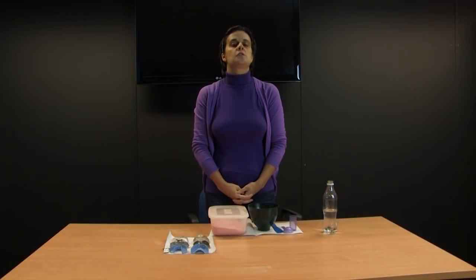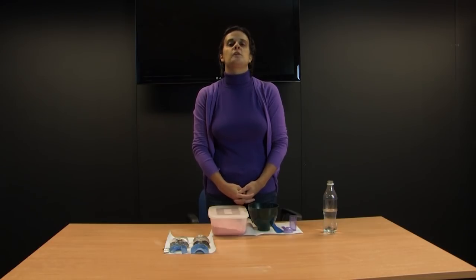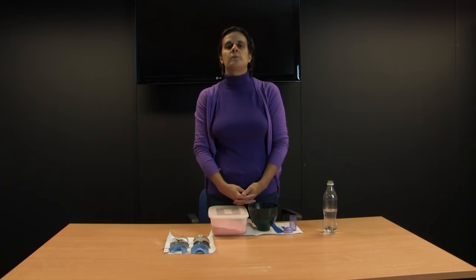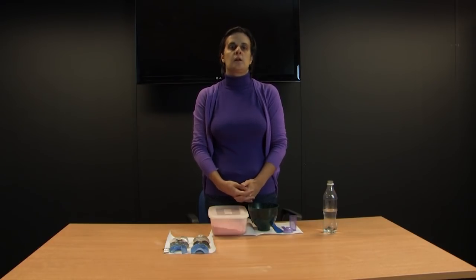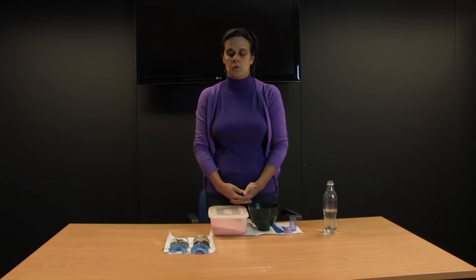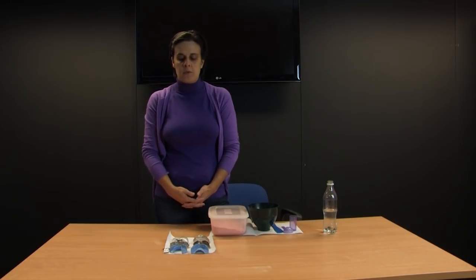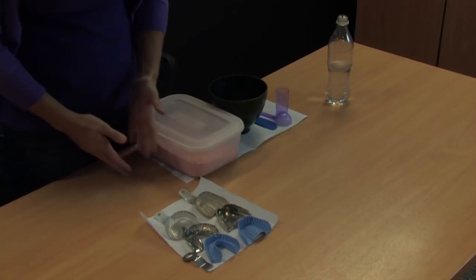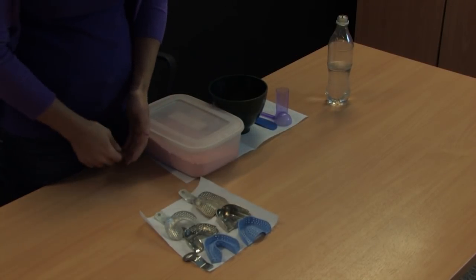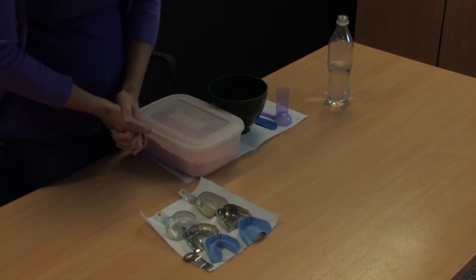I'm going to demonstrate how to mix alginate and show you different types of impression trays. In the surgery when you're working, you should be able to choose the kind of tray you're going to use depending on what it will be used for. First of all, you have to be able to tell the difference between upper and lower impression trays. Here you have a selection of impression trays — on this side the lower impression trays and on this side the upper impression trays.